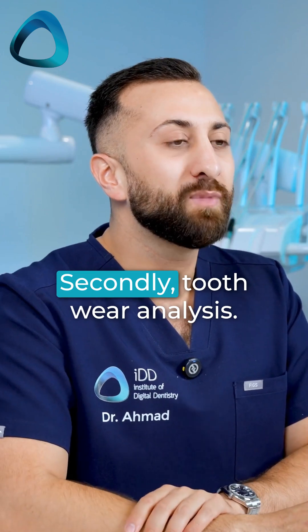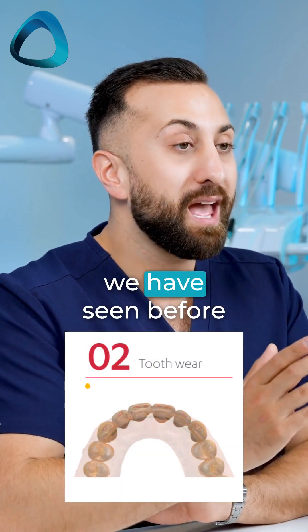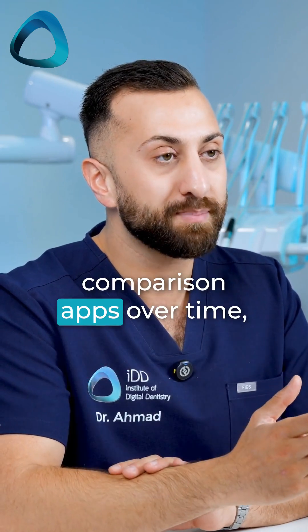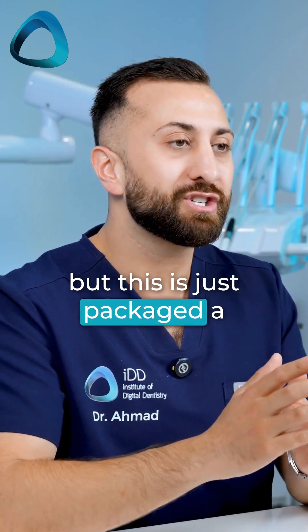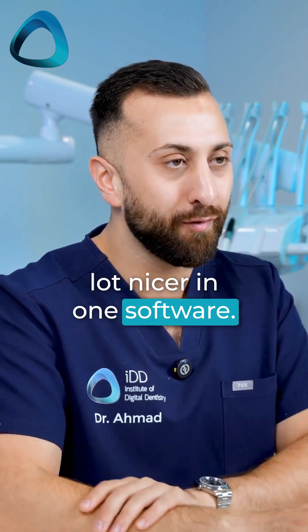Secondly, tooth wear analysis. Again, something we have seen before in things like scan comparison apps over time, but this is just packaged a lot nicer in one software.